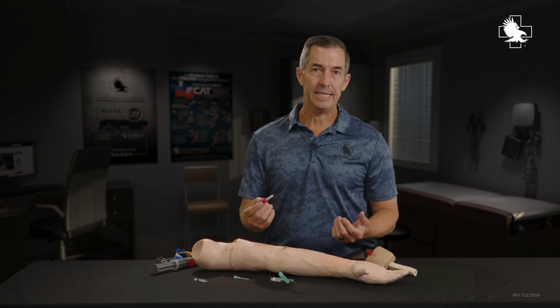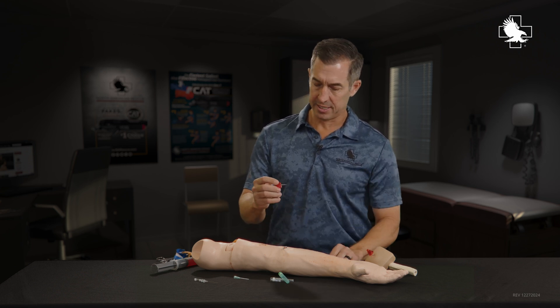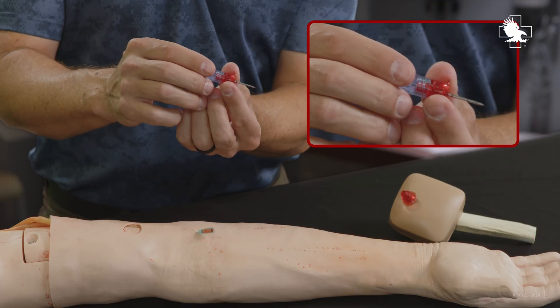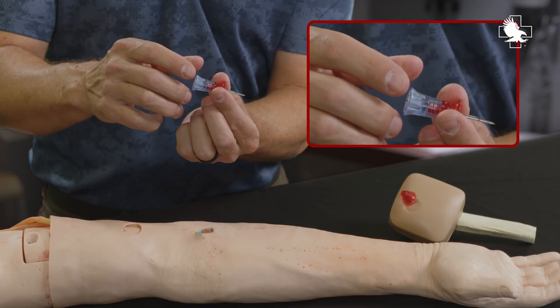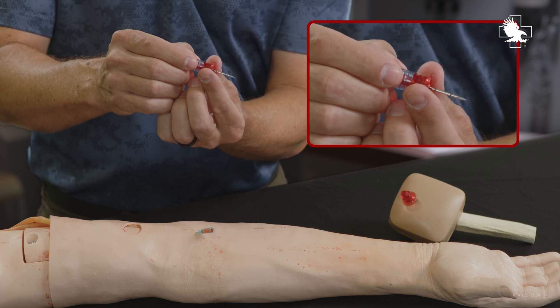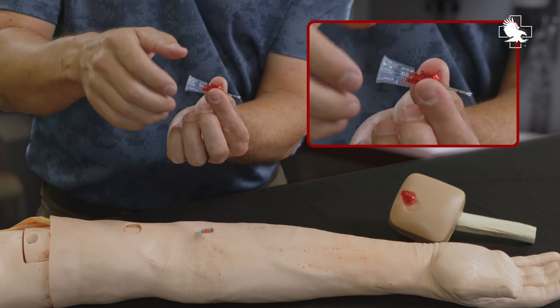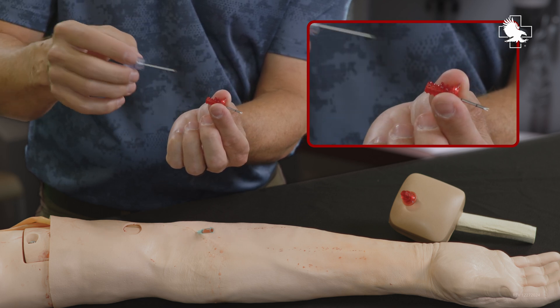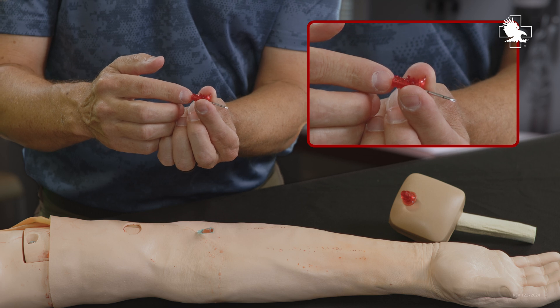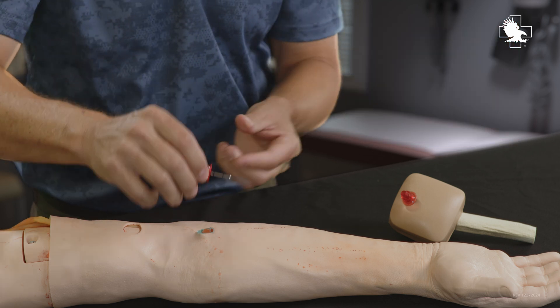What I have here is an EZIO intraosseous needle, designed to be able to drill into the bone. The outer portion is the catheter portion, and that stays in place. We unscrew the middle portion, which was used to drill in, and then now I'm able to get fluid into the middle of that bone, which then returns to the venous system.